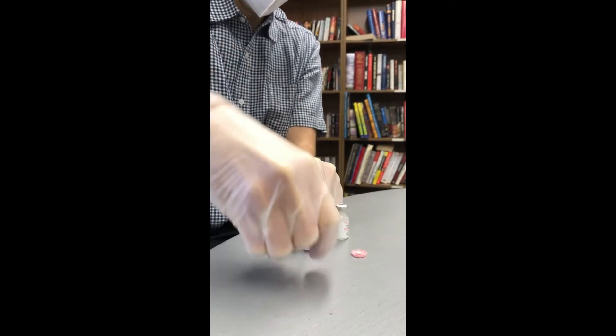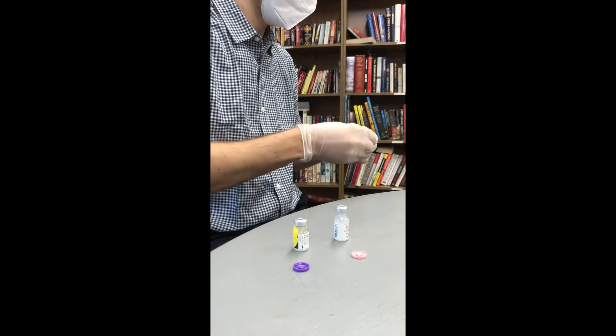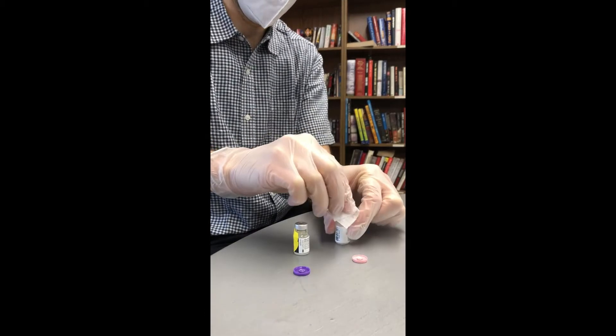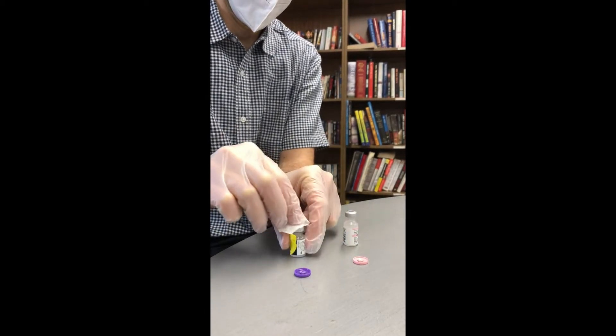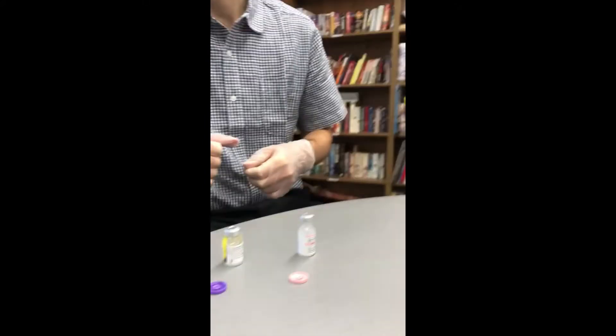Just taking off the caps for each one. Swap the top of it. You need needles — I need my needles.